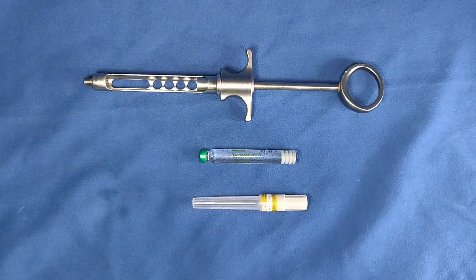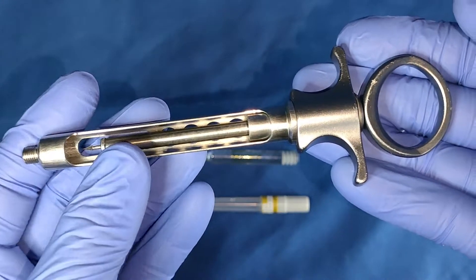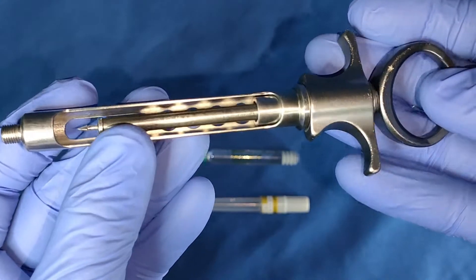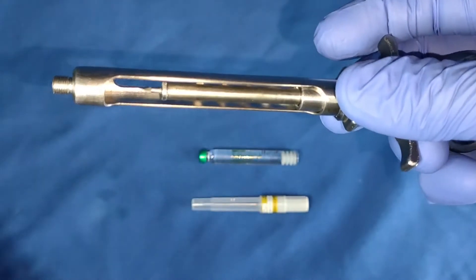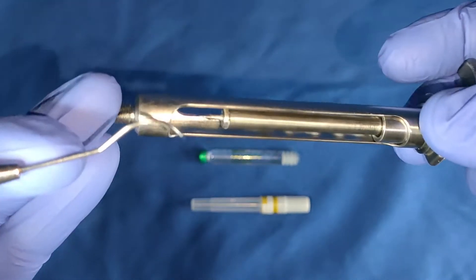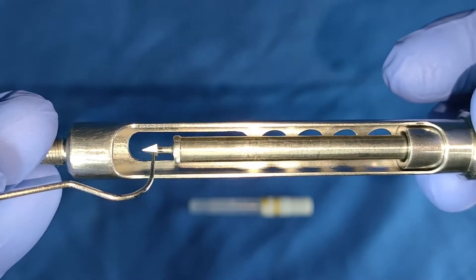Local anesthetic syringe assembly. Here we have the local anesthetic syringe. It's an aspirating syringe because of the presence of this arrow-shaped harpoon. So this is the harpoon.